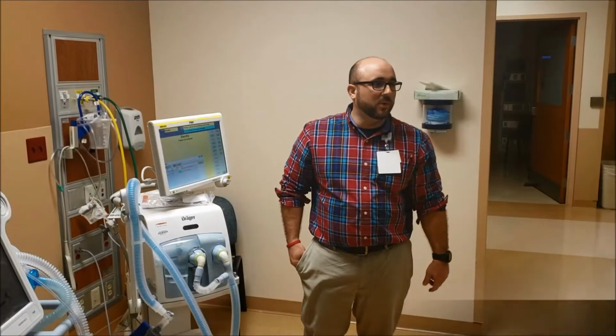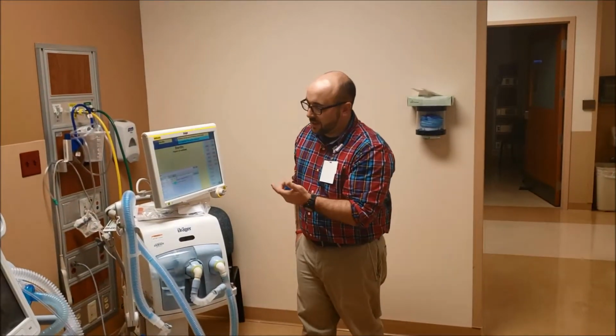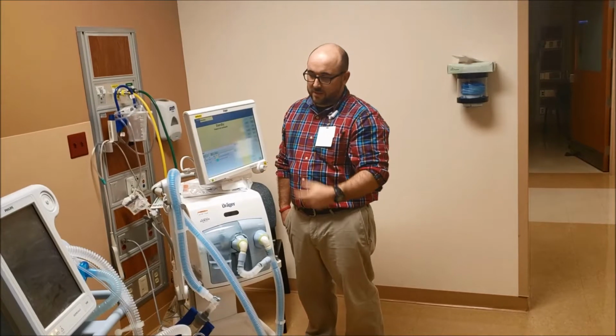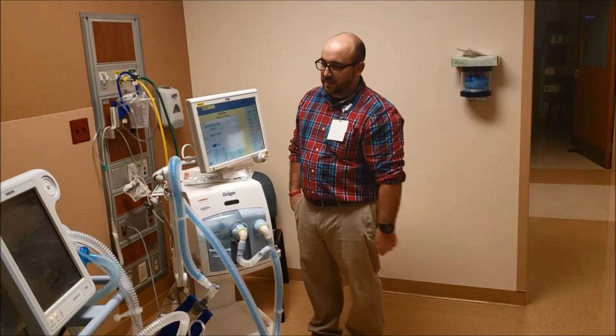the expensive one-time use ones. So it works just the same though. So anytime you're selecting anything on this, if you see when I click alarm reset, it turns this thing on, which tells you have to confirm it to reset it. And it's just like Windows. If you want to get rid of a box, you click the X in the corner.